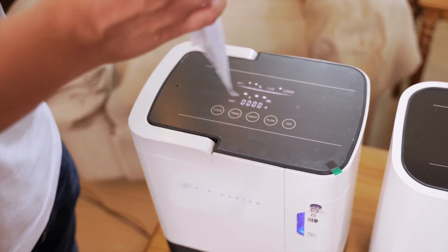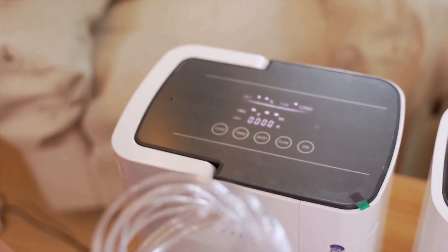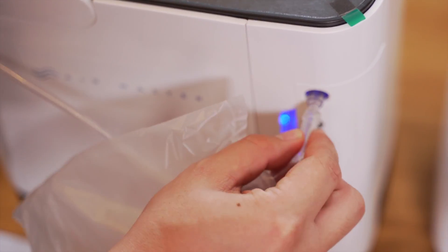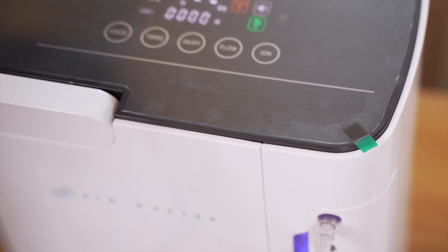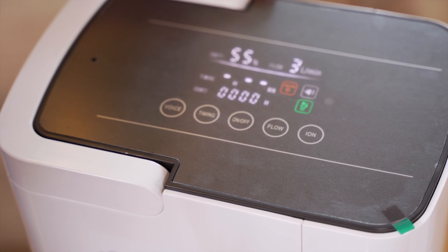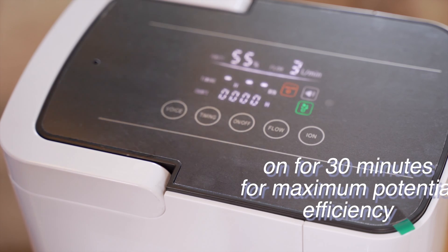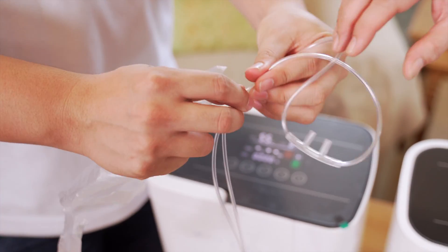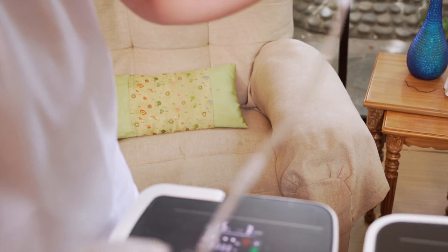We'll turn it off and open this. It says to attach the tubing to the gas chamber, to the inlet. Normally, when you use this oxygen concentrator, you have to let it run for 30 minutes before it can deliver consistent purity. It's best to turn it on 30 minutes before you use it. This is the nasal cannula — the one you attach to the patient's nose. Later, we'll show you how to use this on a patient.